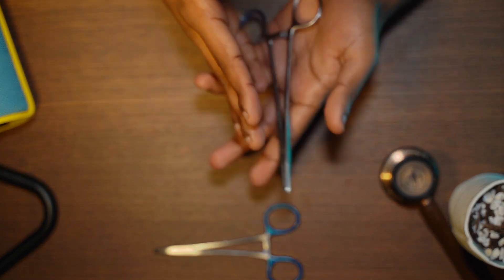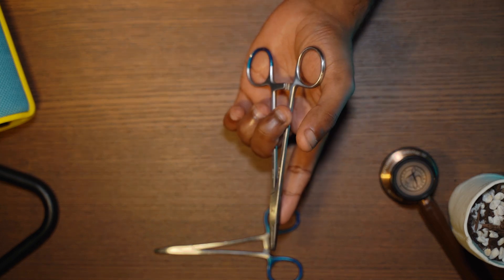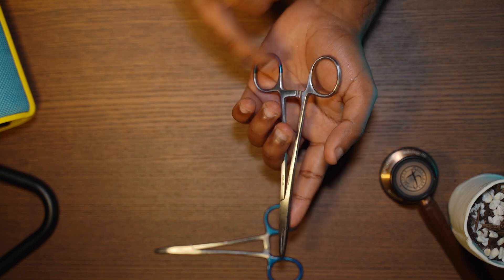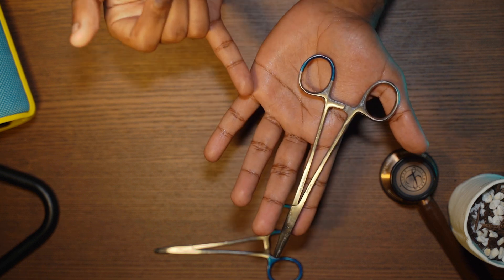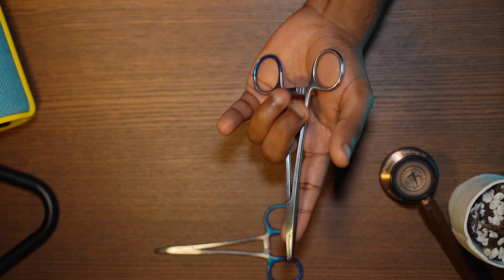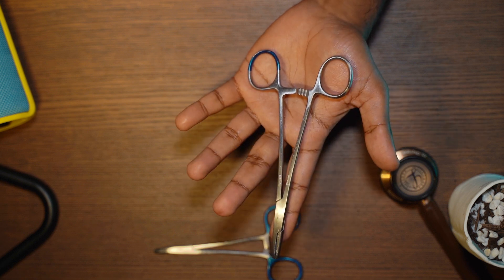Now what if you want to do it left-handed? When you push it into your left hand, what you want to do is push the top part of the actual ratchet, whereas the bottom part is going to be pushed back against the base. You don't really have to think about this — if you just focus on pushing the top part, the base ring will push back up against your hypothenar eminence, which is this bit here. As you push there it should come undone, and you can press back down with the base of your thumb, then push the top bit again and it should just flick open.